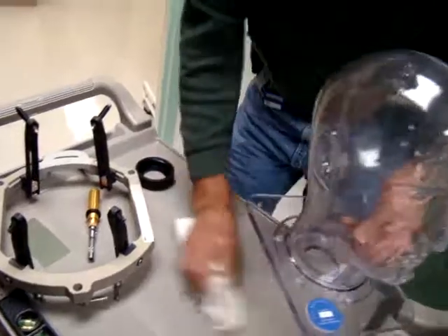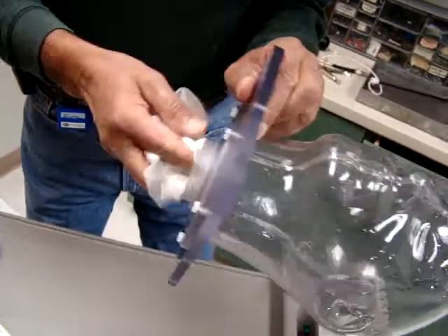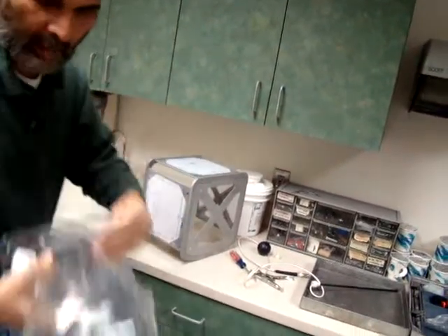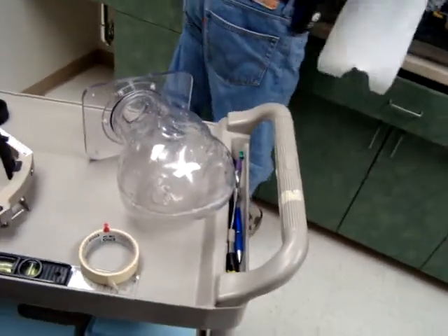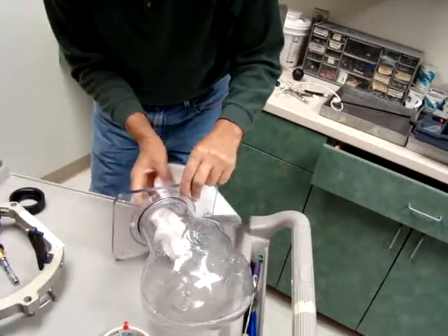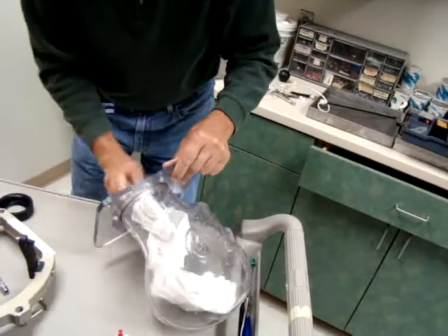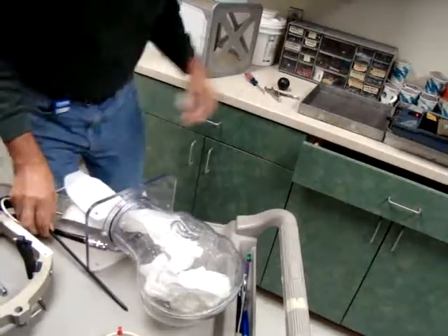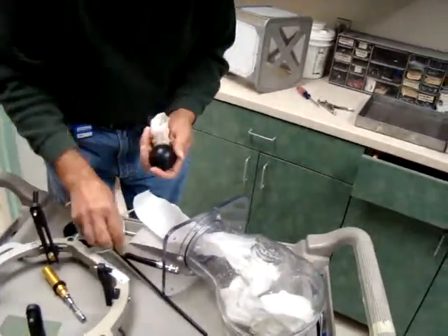We clean up — cleaning is the fundamental thing. I'll leave it open so that it dries. I'm going to leave it right here so it can get dry. You need to absorb some moisture, later on you just remove it. And this goes here. If you mix any of these then you are in trouble later on — these are all the nice screws, you know.